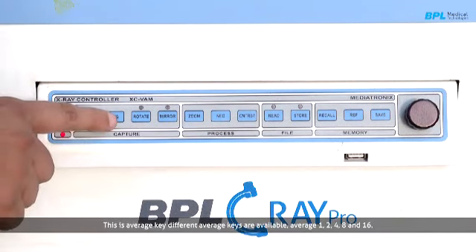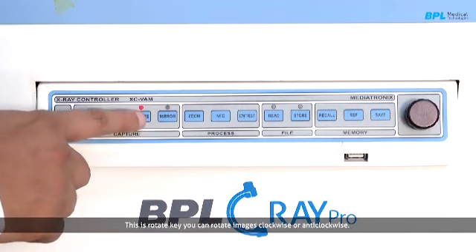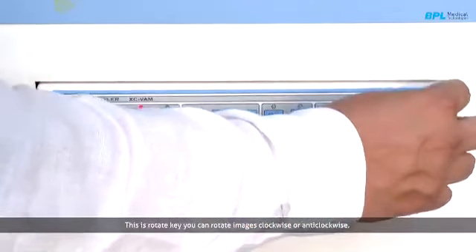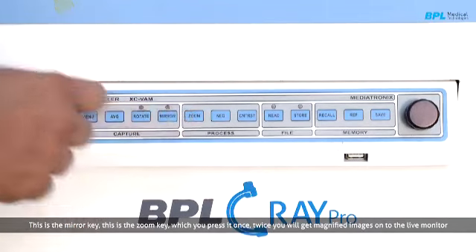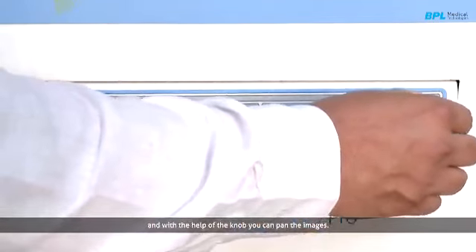This is the average key, and there are different options available like averaging 1, 2, 4, 8 and 16. The more the averaging, the more noise-free images you will get, but the blur will be more. So we have to select an optimum averaging setting based on the procedure. This is the rotate key, and you can rotate the image either clockwise or anti-clockwise. This is the mirror key. This is the zoom key, and you just press it once, twice, so you will get a magnified image onto the live monitor, and with the help of the knob you can pan the same image.